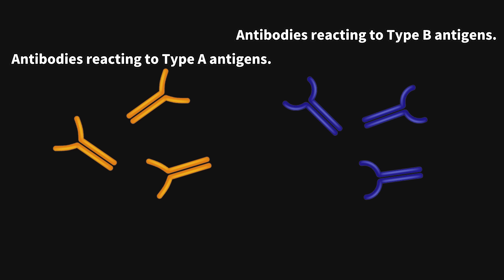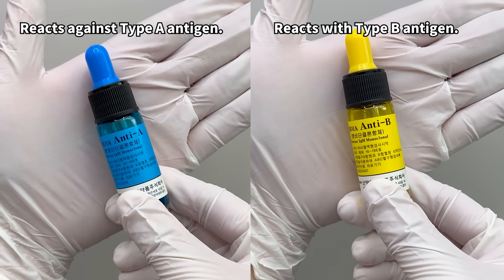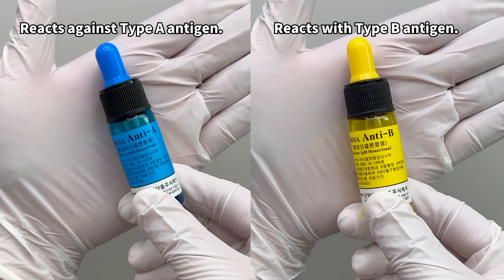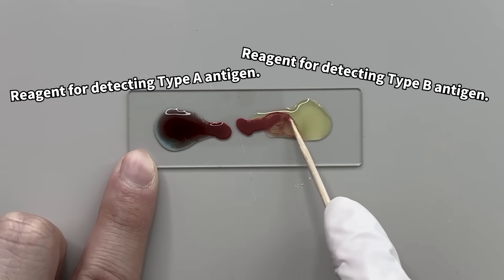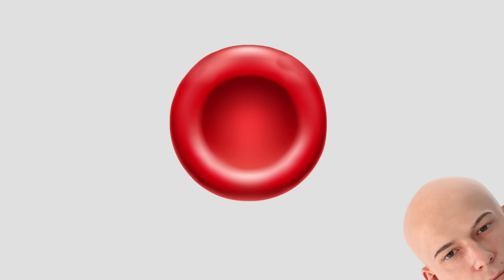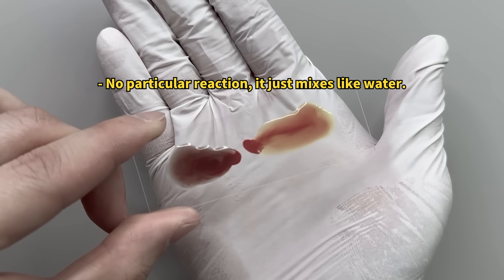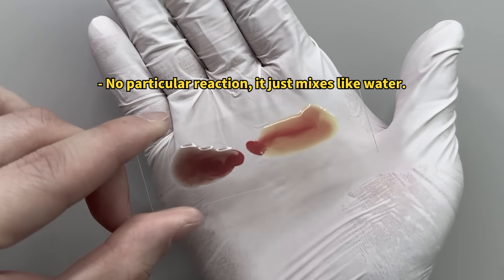To test blood types, we use reagents that contain antibodies specific to each antigen. First, I mixed my blood with the reagent. Since I am type O, my red blood cells lack antigens, and therefore there was no reaction.